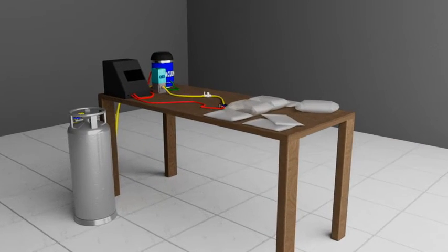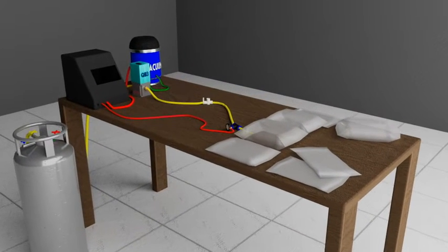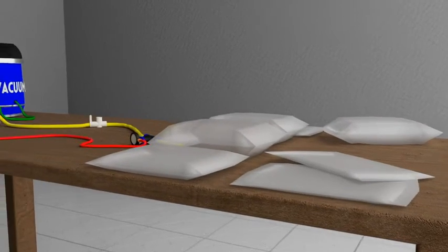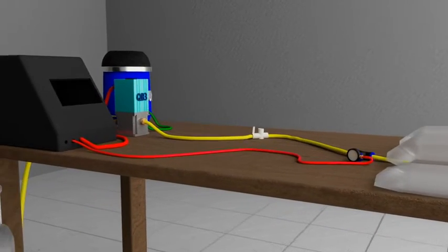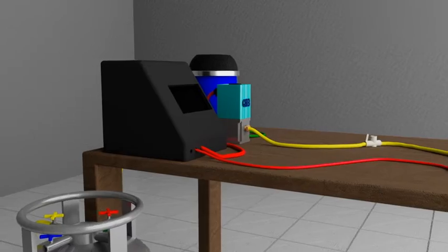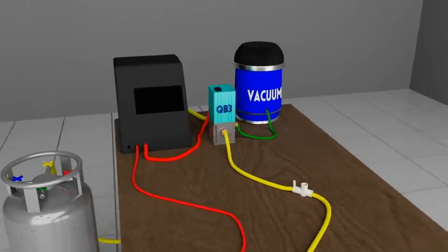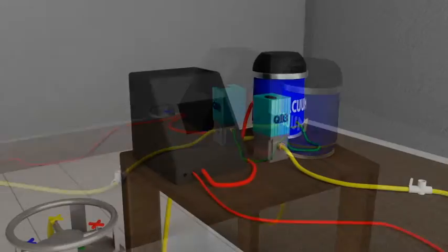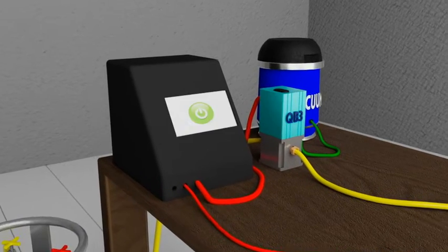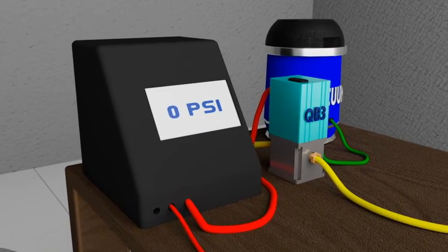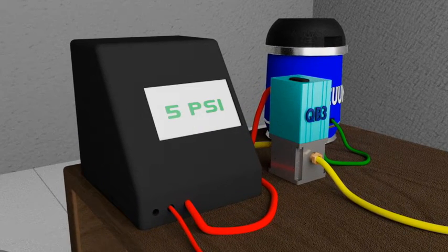Quality control is imperative in medical equipment manufacturing. Producing IV bags is no exception, so they are tested before they go into use. In this example, we use a pressure regulator to assist in testing an IV bag for leaks.